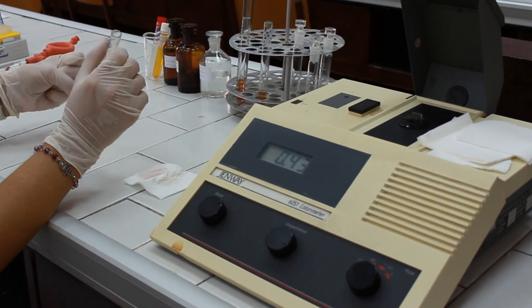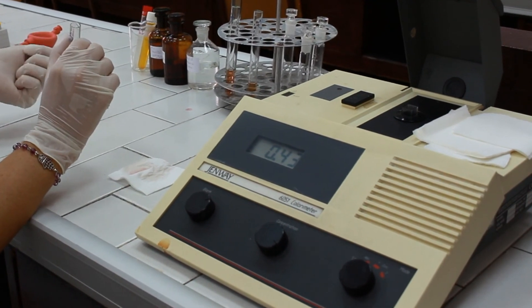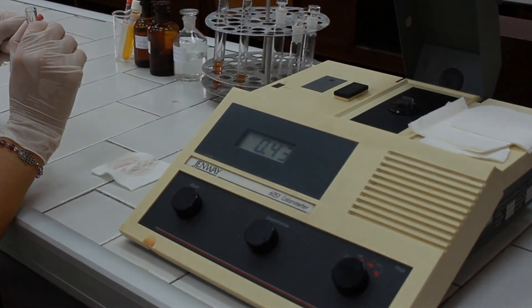Using the equation provided in the manual, calculate the concentration of glucose.